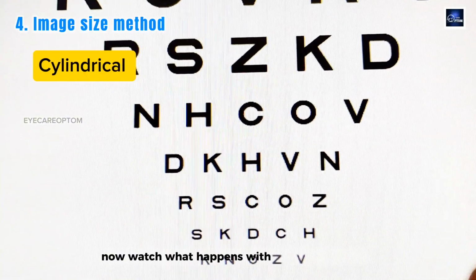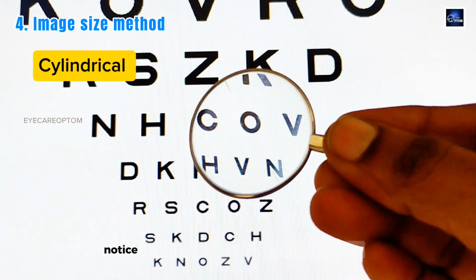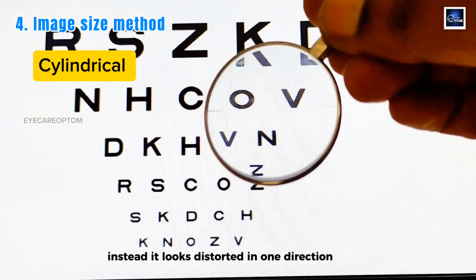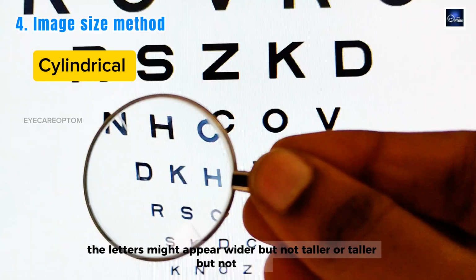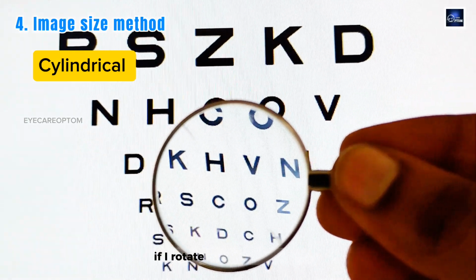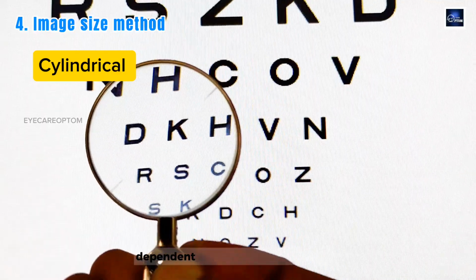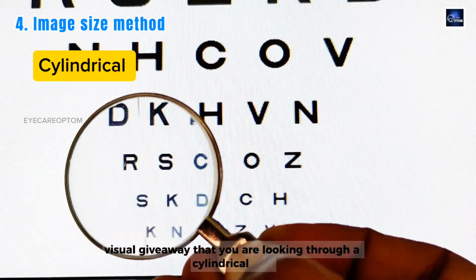Now watch what happens with a cylindrical lens. Looking through the cylindrical lens at the same letters, notice the letters are not uniformly magnified or minified. Instead, they look distorted in one direction only. The letters might appear wider but not taller, or taller but not wider, depending on which meridian carries the power. If I rotate the lens 90 degrees, watch the distortion flip to the other direction. This uneven and direction dependent distortion is the clearest visual giveaway that you are looking through a cylindrical lens rather than a spherical lens.